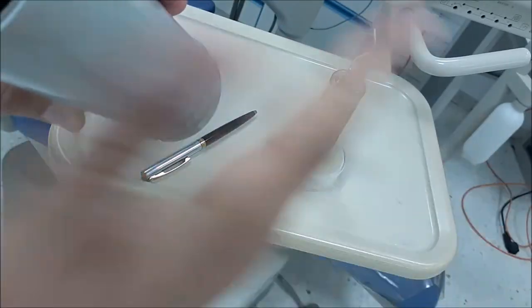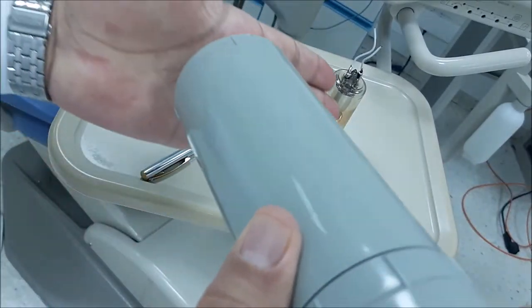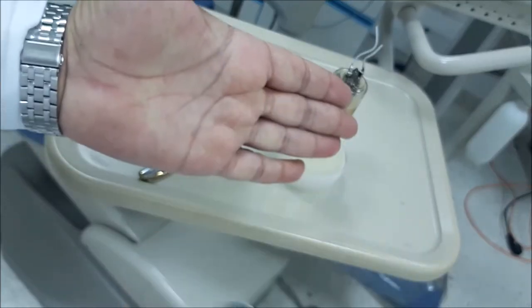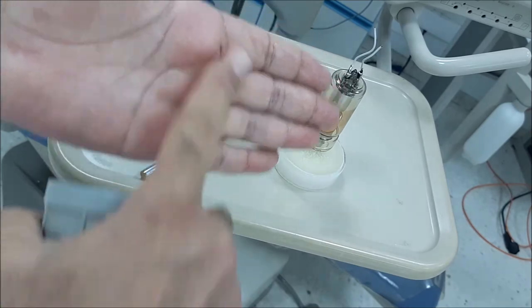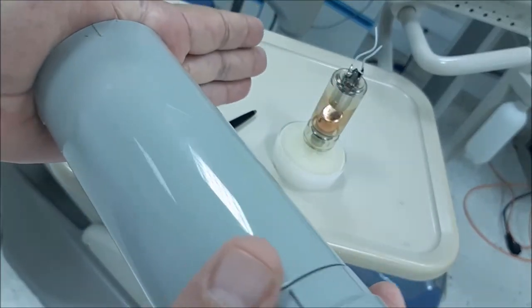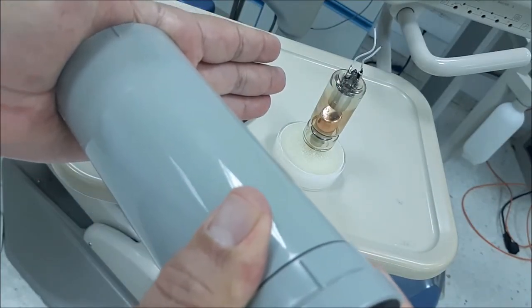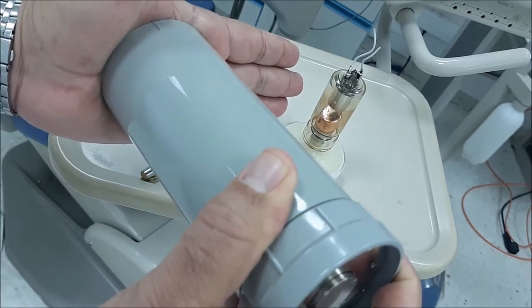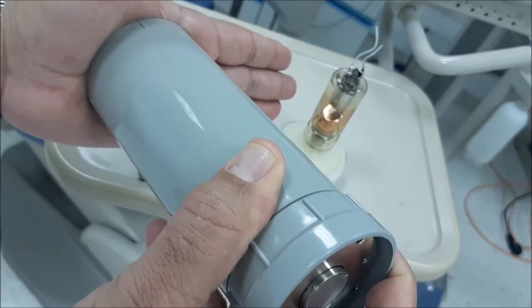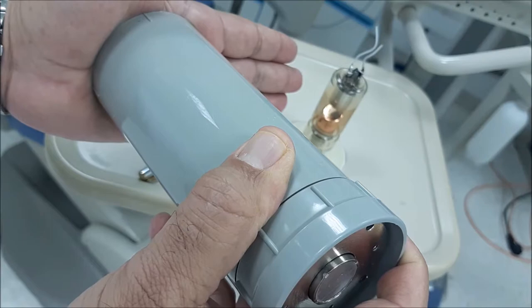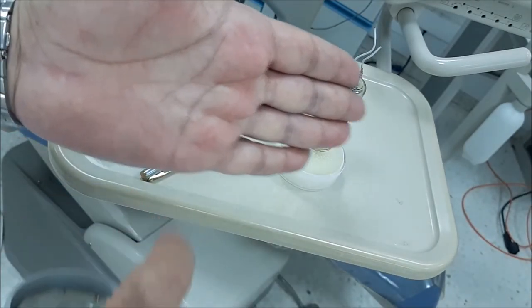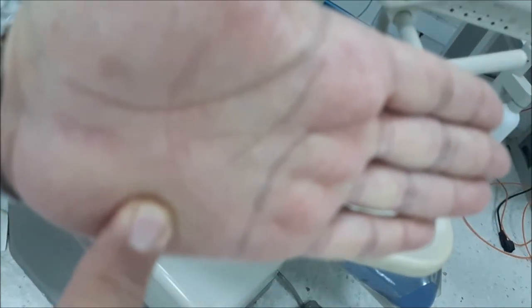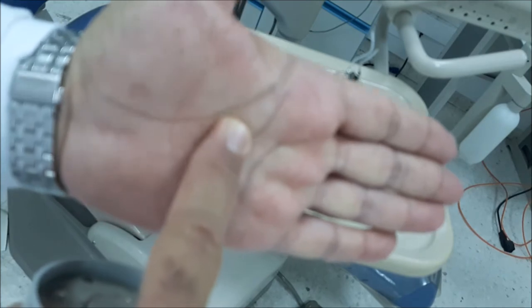So when I put the x-ray on my hand and remove it, only this part is exposed. Anything outside of the borders of the PID or the cone, which is the position indicating device, is not exposed. There's no x-ray outside this area, but the x-ray is only present in this part.